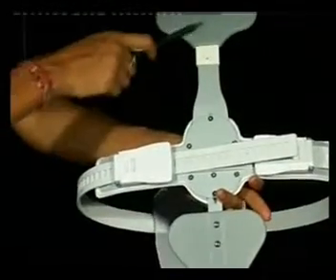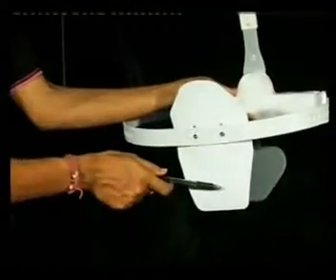Medi-3C is a three-point hyperextension brace. This two is the anterior support and one is the posterior support. It is available in thoracic and lumbar sections.